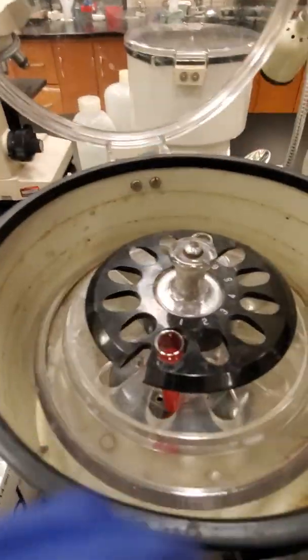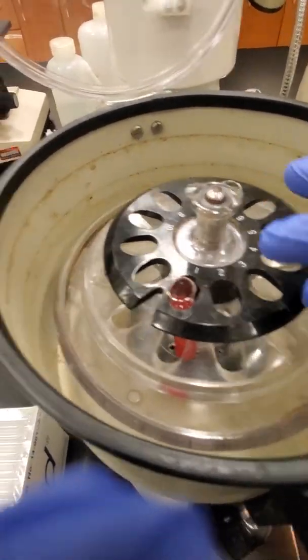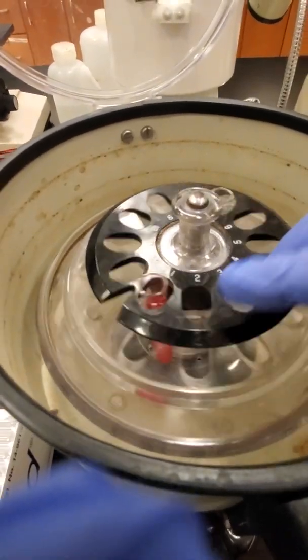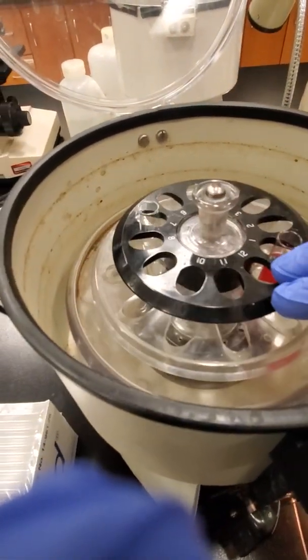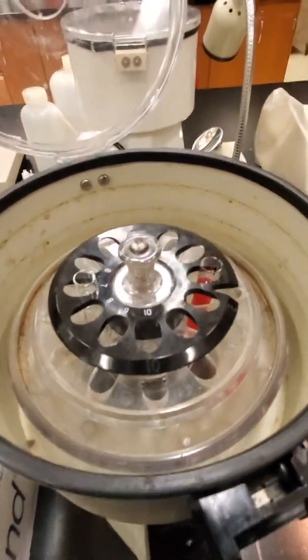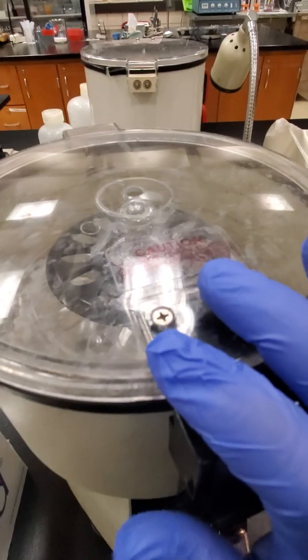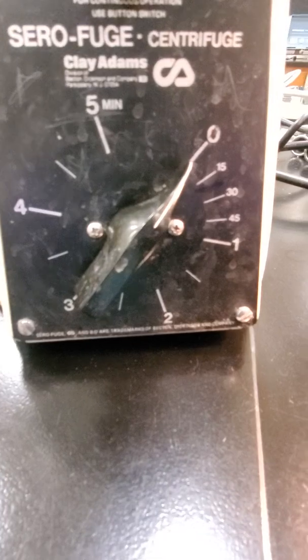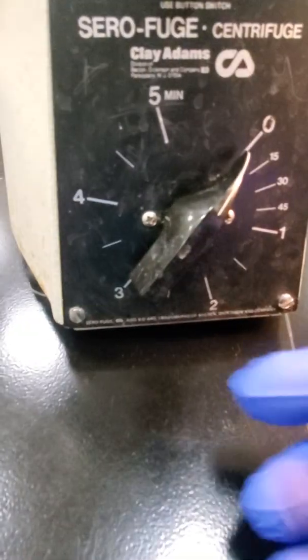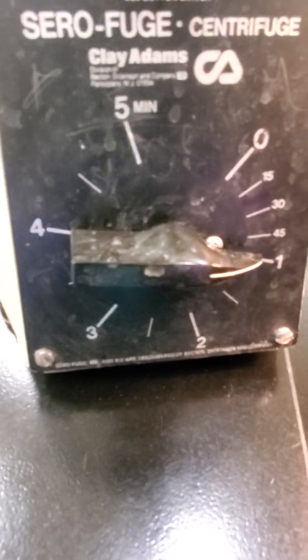Everybody, I hope, knows how to balance a centrifuge. The centrifuge is really dirty. So I put my sample in number 1, and right across from it is number 7. So that is a balanced centrifuge. We want to make sure that all of our tubes have a partner across from each other and that they're the same volume. So I'm just going to close the lid, snap it shut. When we set our timer for 1 minute, I'm going to turn my timer past the 1 and then turn it back to 1. So it's going to wash for a minute.